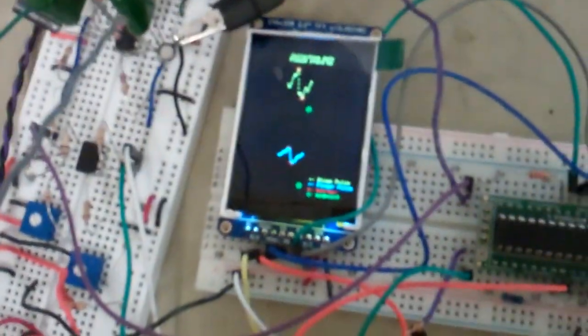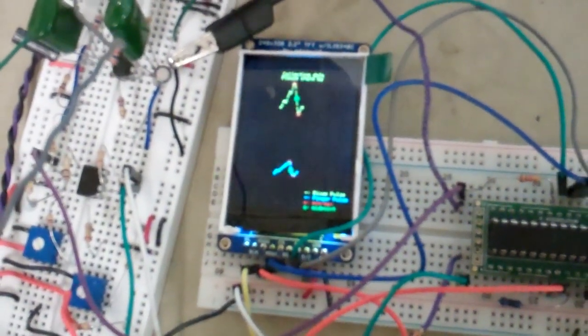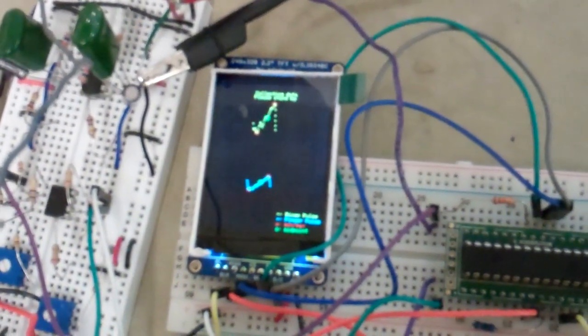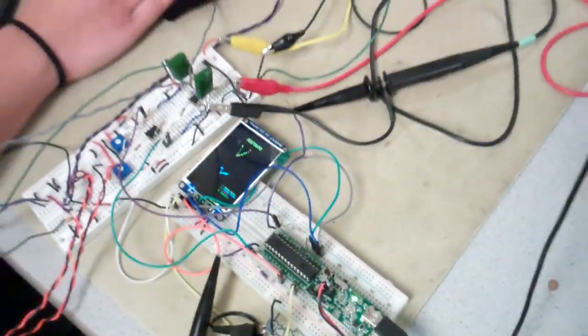There's a little bit of analytics happening here where you're trying to get the maximum and minimum and then do some averaging. These are diagnostic readouts on the TFT which give you the waveform for each different cycle. After it finishes collecting 50 samples of the correct midpoint, it displays the calculated blood pressure.